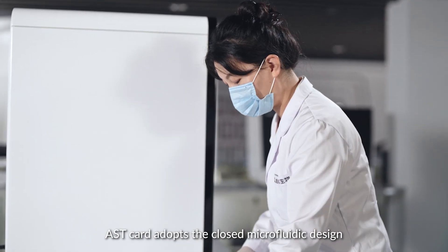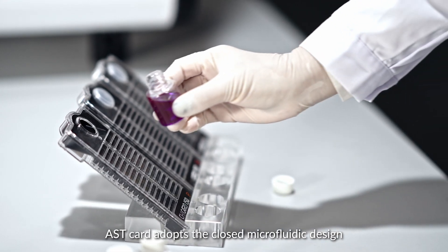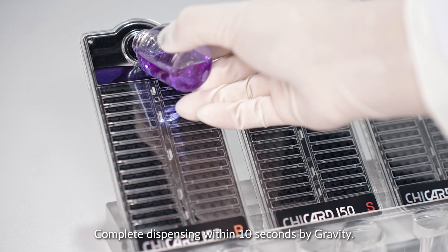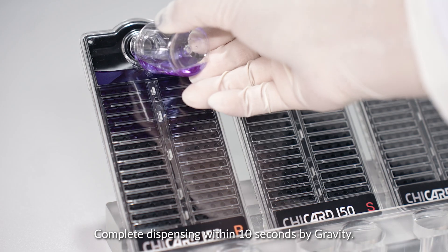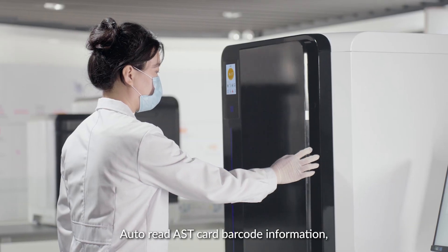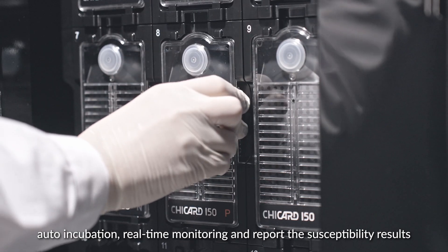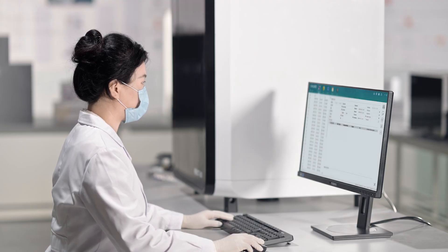The AST card adopts a closed microfluidic design, can be stored at room temperature, and completes dispensing within 10 seconds by gravity. The instrument can auto-read the AST card barcode information, perform auto-incubation, real-time monitoring, and deliver susceptibility results.